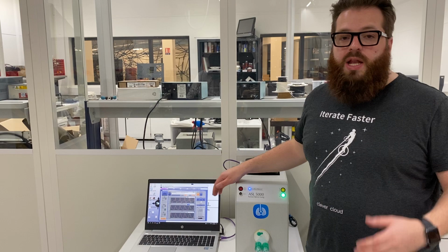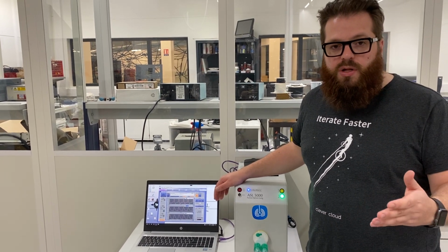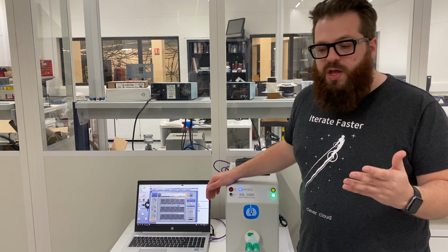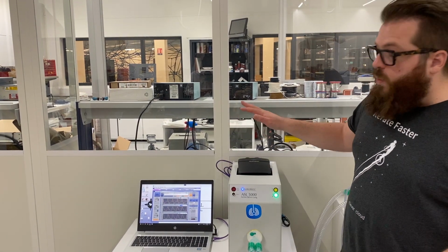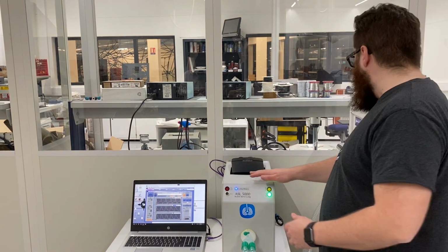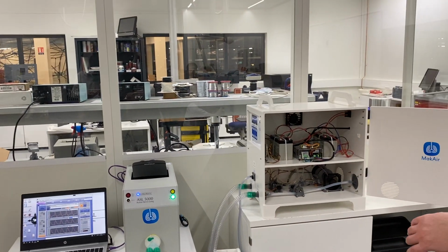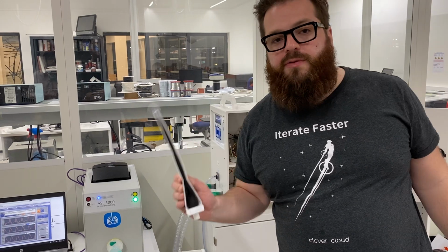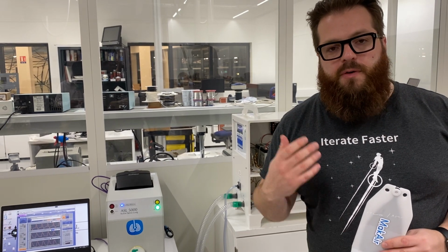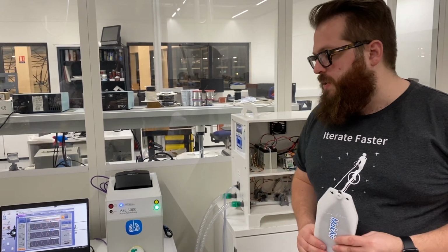These have been validated by real professionals and our scientific council. We test all the designs with this kind of setup, and also independent setups, but it's way less relevant in the case of what we built.